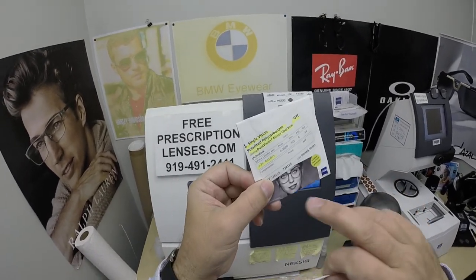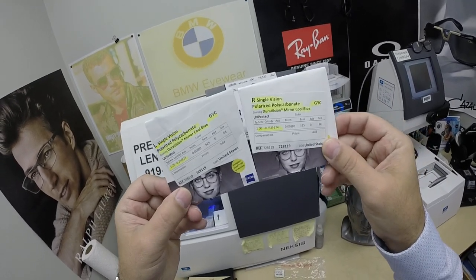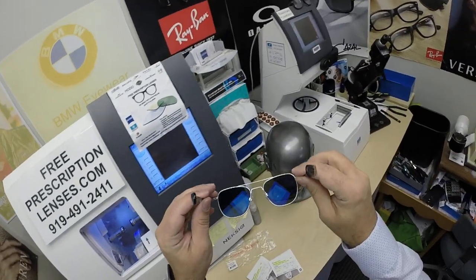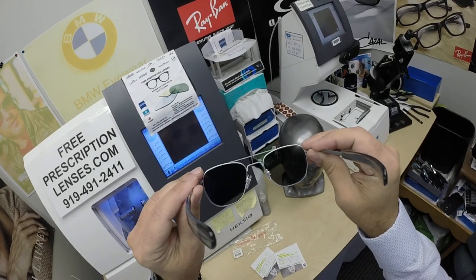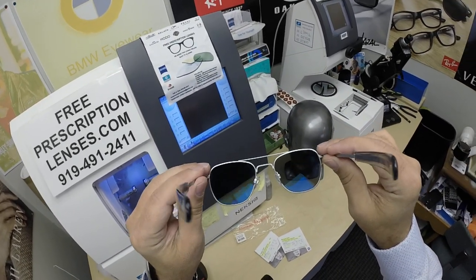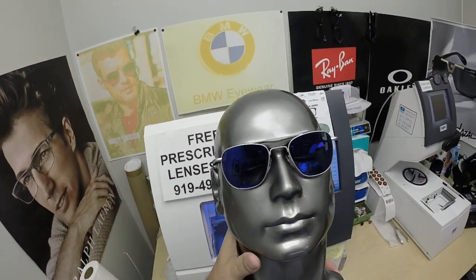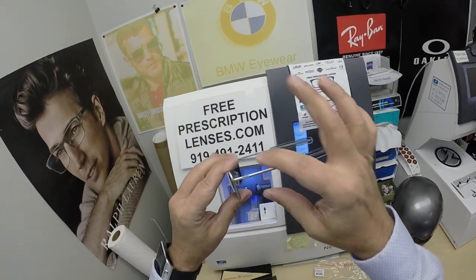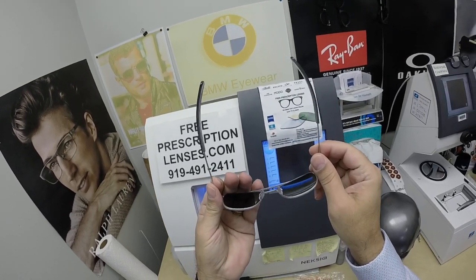I've highlighted the prescription for the right eye — same for the left. The stickers weren't printed on the packets perfectly, but the nice thing about the mirror coating is it adds the DuraVision sun back-surface anti-glare at no charge, which is normally $69. You get that for free with the mirrors. This is just the classic styling. By the way, it's got the straight bayonet temples and the built-in wrap, so it'll stay on evenly.